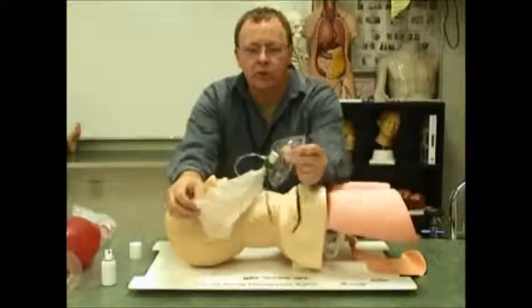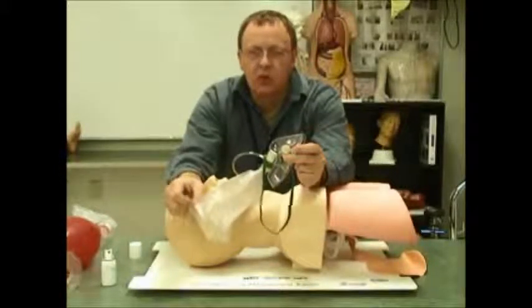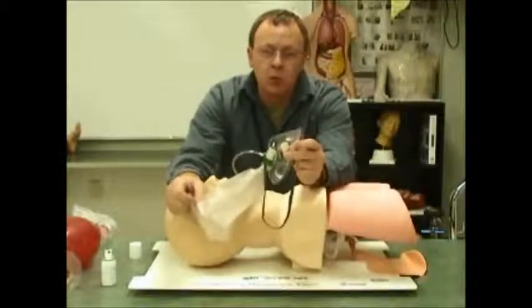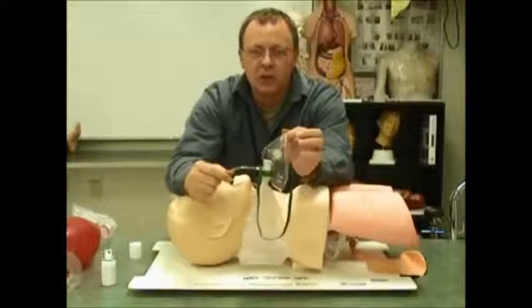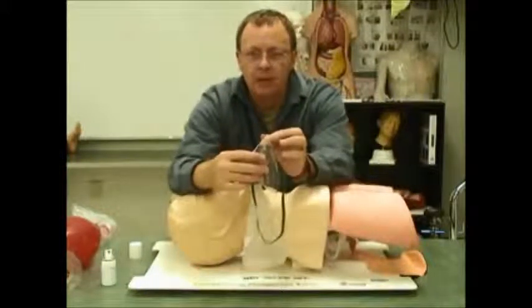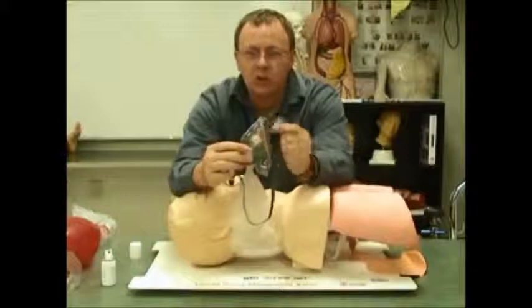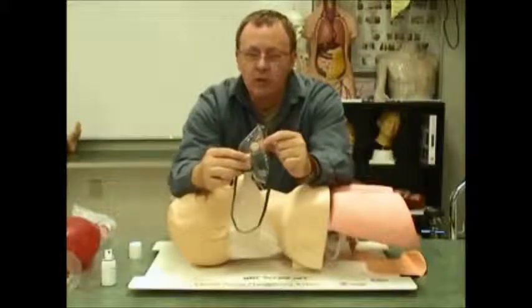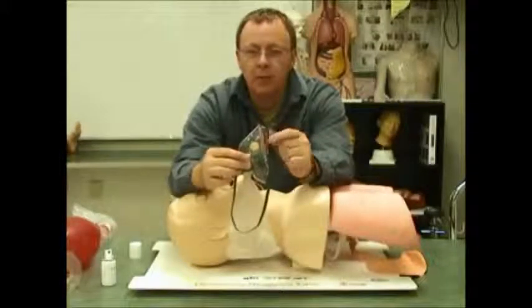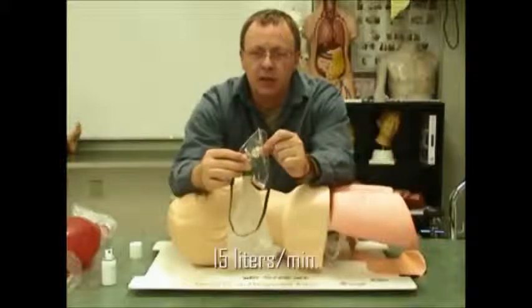The second O2 delivery device is the non-rebreather mask. Like the nasal cannula, this does increase oxygen percentages being delivered, but from 21% room air, this will increase oxygen up above 90%. This increase in oxygen percentage is achieved by a higher flow rate delivered through a mask. We typically run this from anywhere from 8 liters and above, but in general, 15 liters per minute is the typical standard setting for a non-rebreather mask.